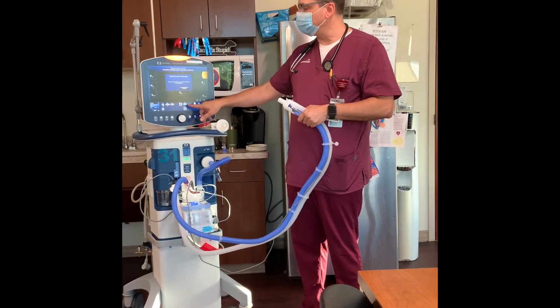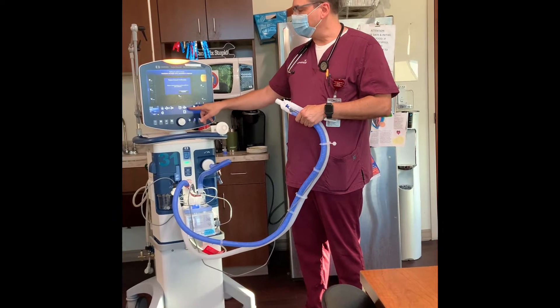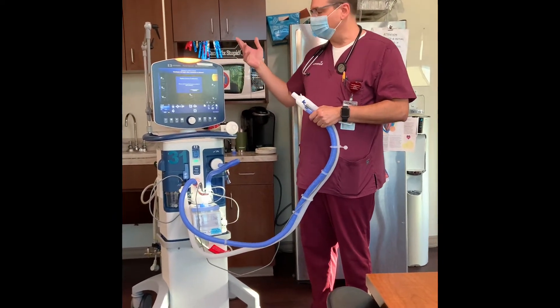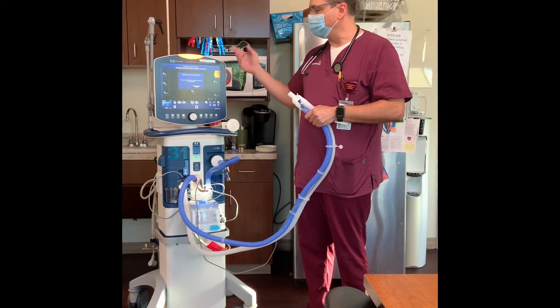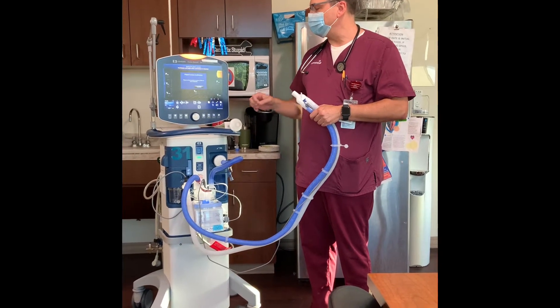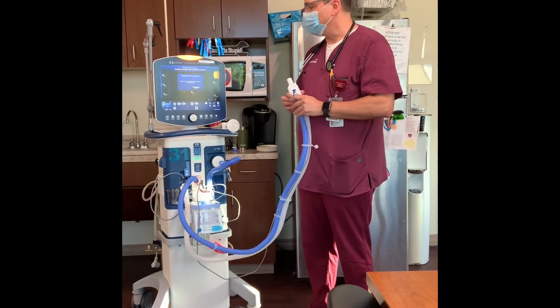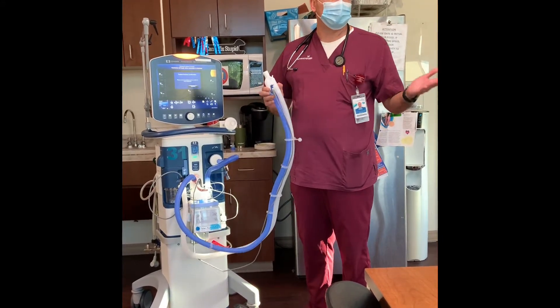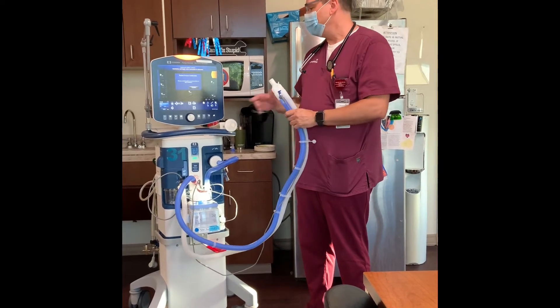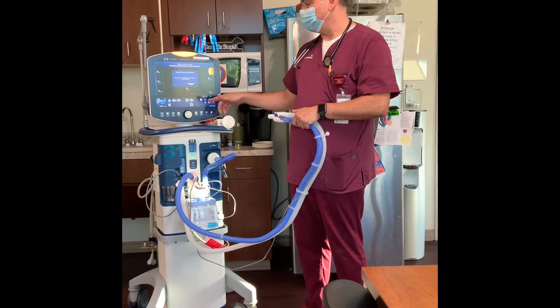The next setting is the oxygen level — I have it set here for 100% oxygen. We can set that anywhere between room air and 100%. And then PEEP — positive end expiratory pressure. We all walk around right now with about 5 of PEEP; that's physiologic. So normally you'll see at least 5 of PEEP set for patients.